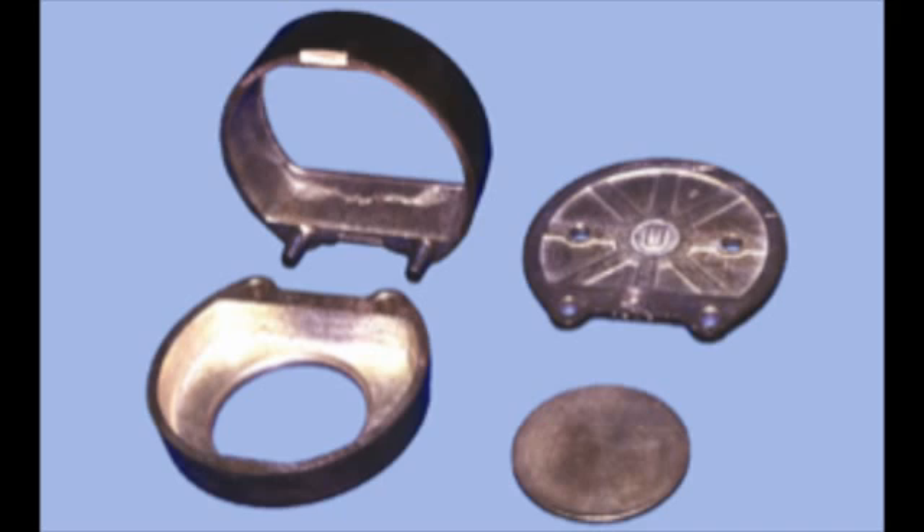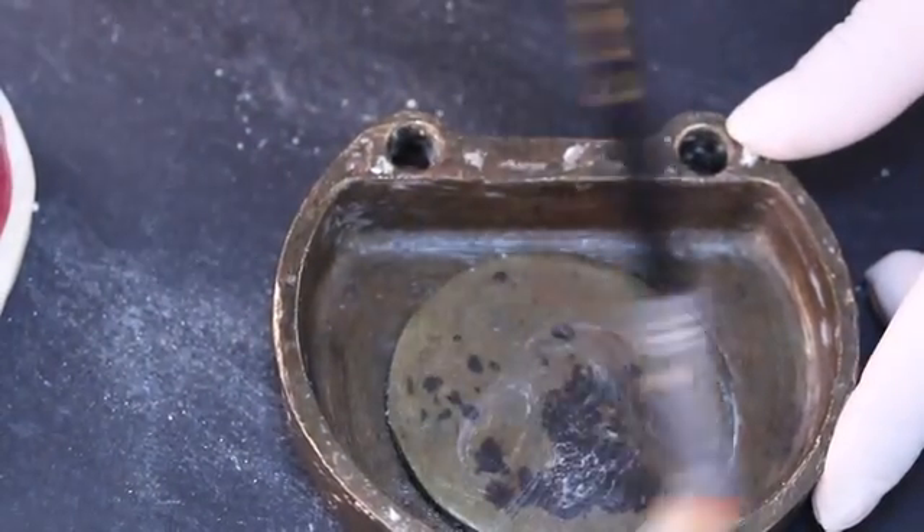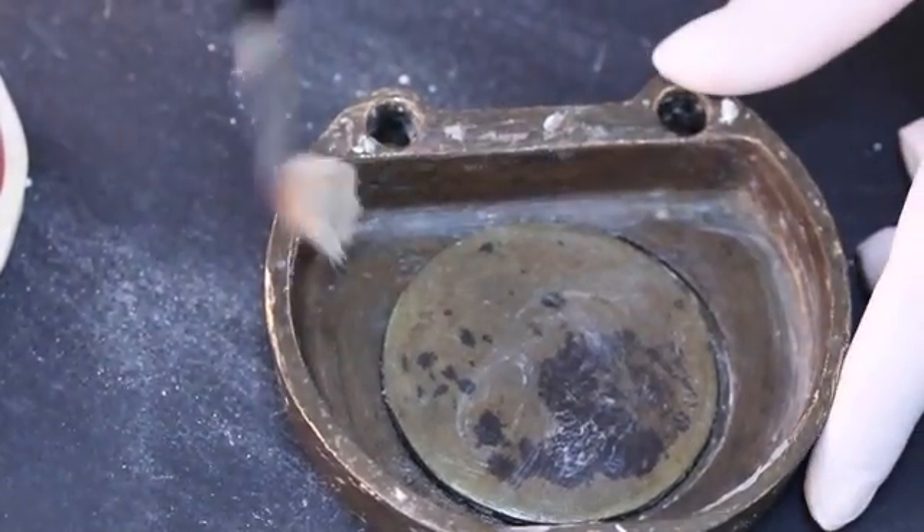Check the dental flask. Remember that they should be kept in good condition. The assembled flask should not rock when forces are applied; there should always be a solid metal-to-metal contact between the flask components. In addition, apply petroleum jelly on the inner surface of the flask. This prevents oxidation, which can alter the fit of the components.